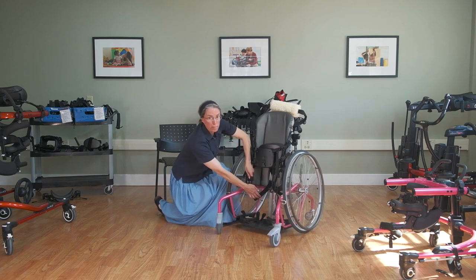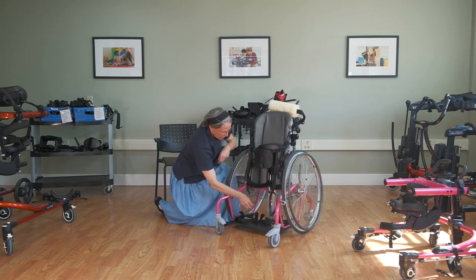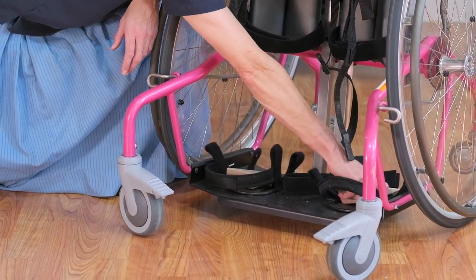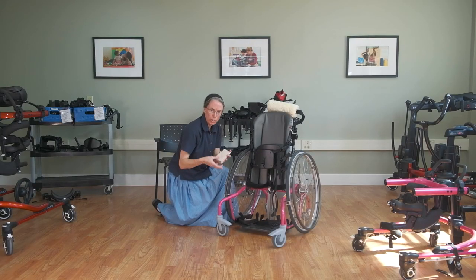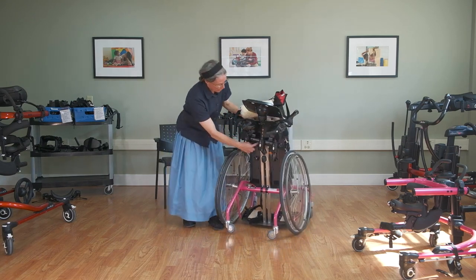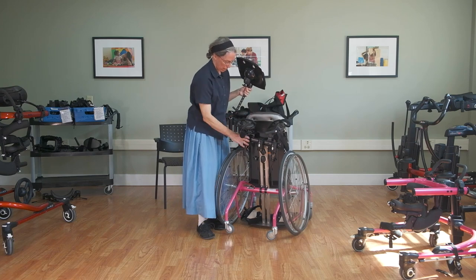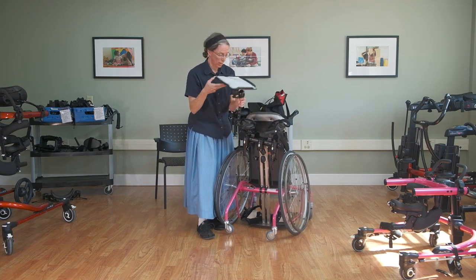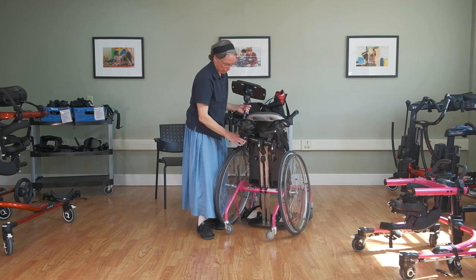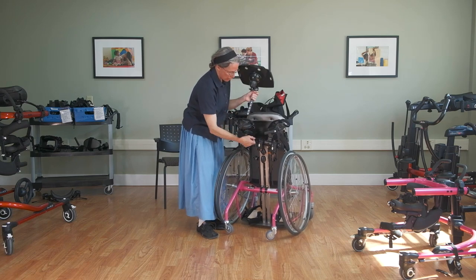We have the knee strap, which is built into the product and basically just holds the legs apart, and then the option for sandals which can be secured into the footboard, along with little ramps to accommodate contracture. There's a nice mounting bar at the front that allows you to secure either arm prompts or potentially a communication tray — rarely would you be using both at the same time, but the mounting bar accommodates either of those accessories, and it just slides into the front with knobs.